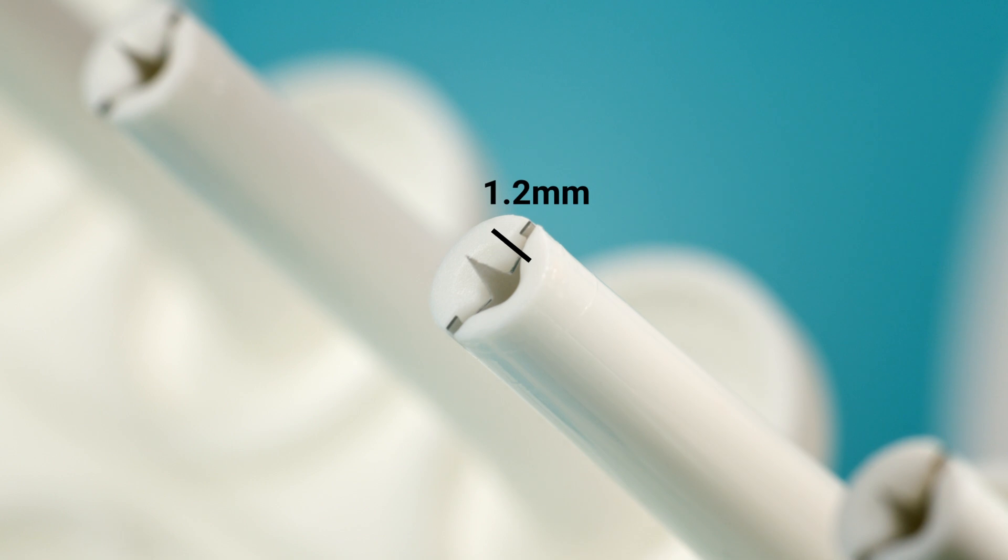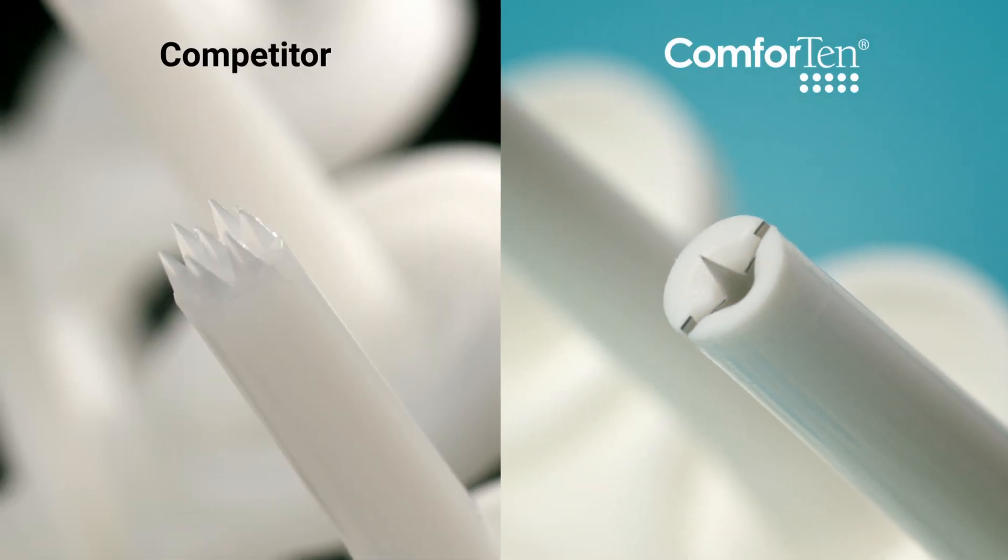They feature 1.2 mm surgical steel lancet tips and are uniquely designed for minimal patient skin trauma and are optimized for patient comfort.